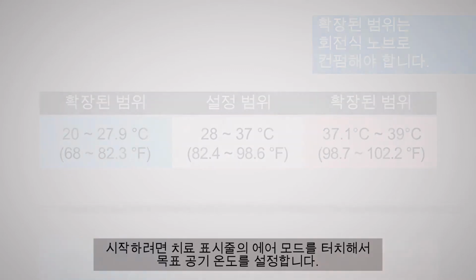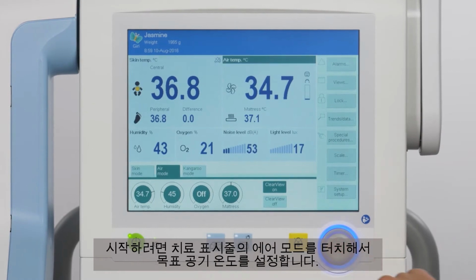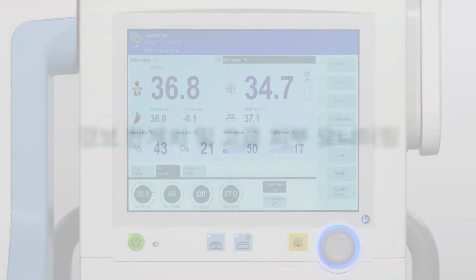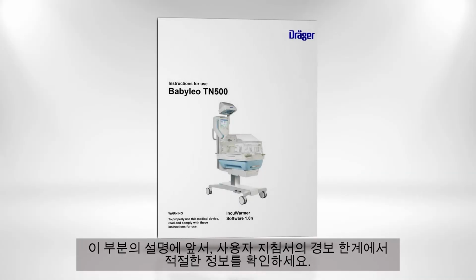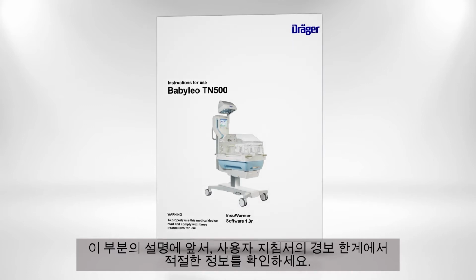To start, touch the Air Mode tab on the therapy bar and set the target air temperature. Don't forget to check alarm limits for air temperature and adjust if necessary. Before beginning this section of our video, please check the instructions for use concerning all pertinent information on alarm limits.